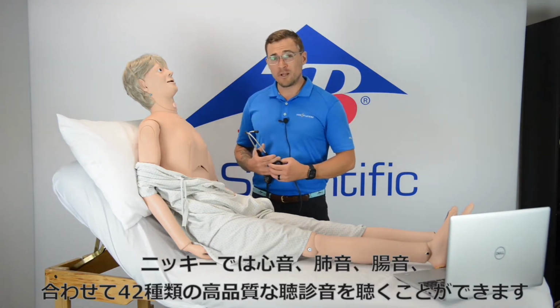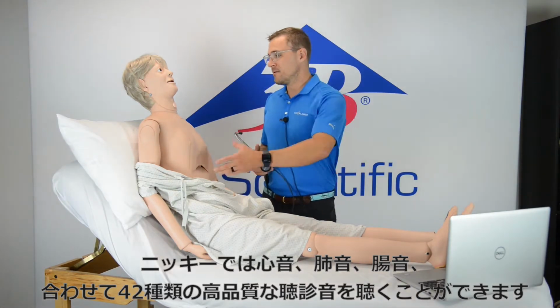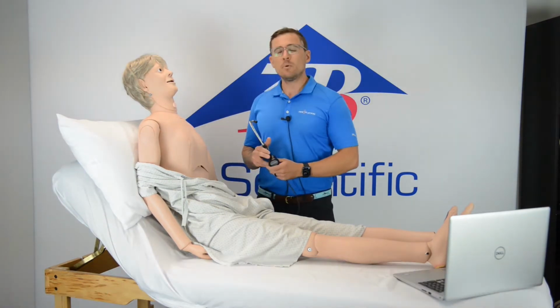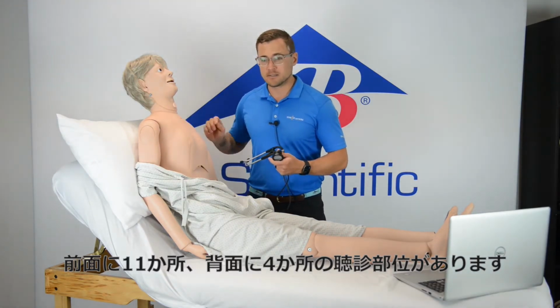Nikki has 42 high-quality sounds powered by Cardionics that we're able to listen to for the heart, the lungs, and the abdomen. We have 11 anterior auscultation sites. We have 4 posterior auscultation sites.